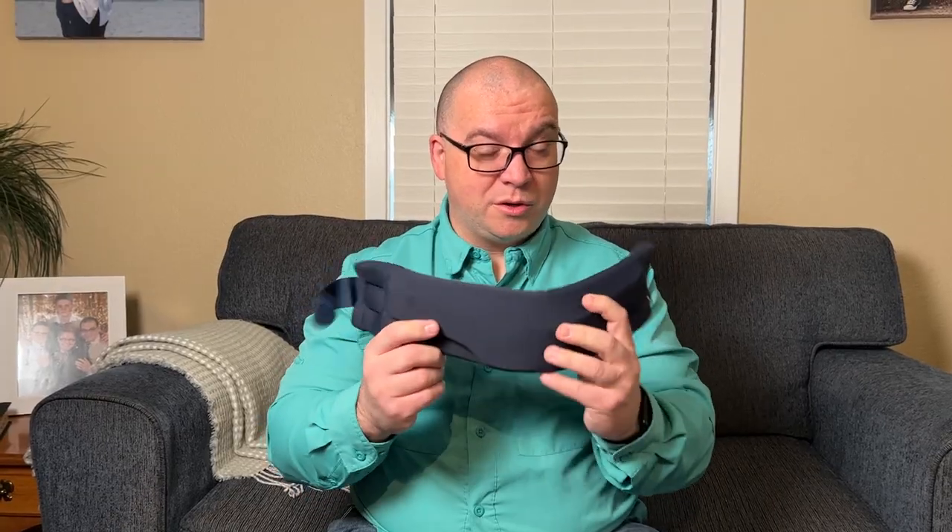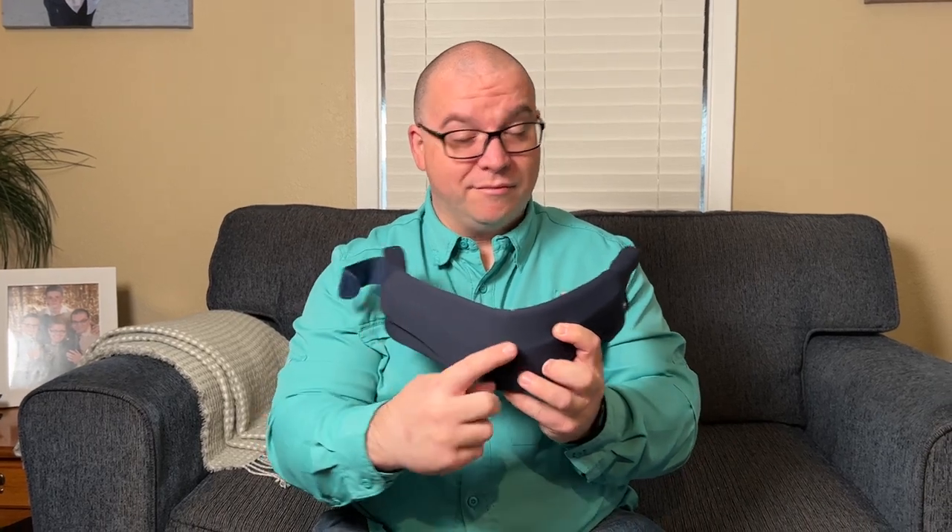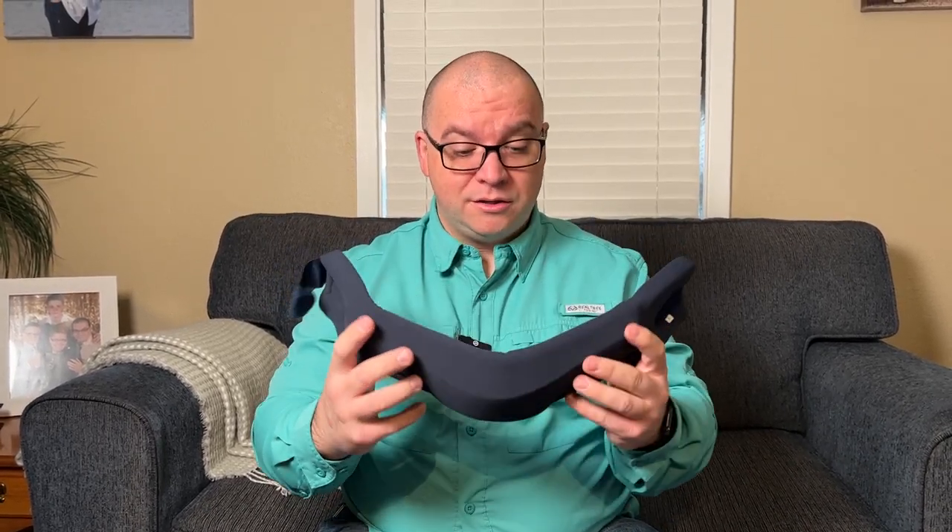To put this on, we're going to put it on just like this. You'll notice kind of a V shape there — that is made to go underneath your chin. That way the support isn't right up in your chin, which makes it much more comfortable to wear.